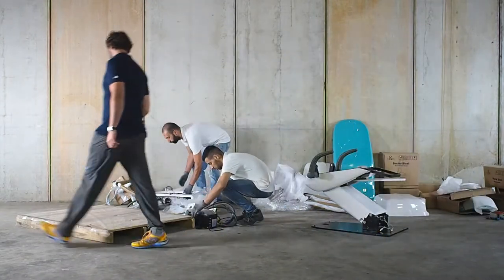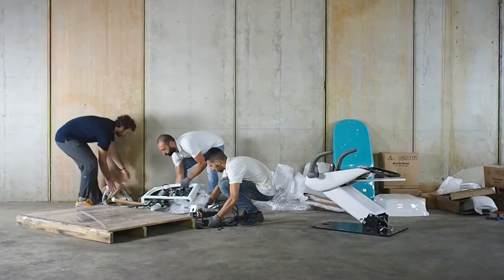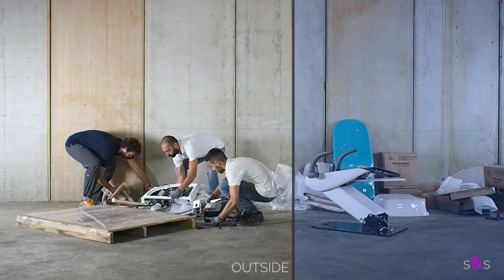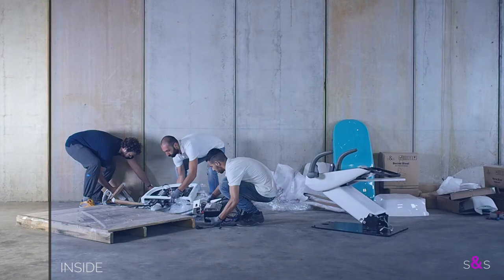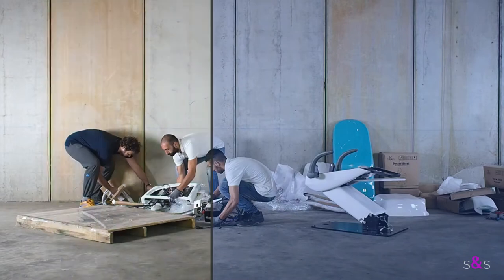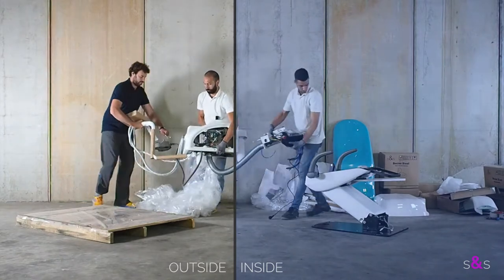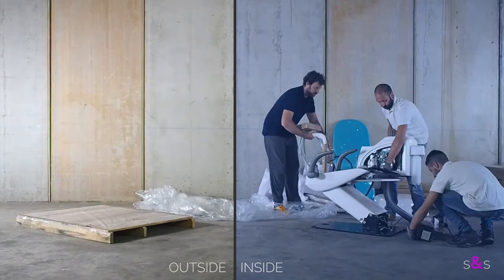It's time to place the water unit in position. The water unit can be outside the clinic or inside the clinic. It depends where you have more space to do this operation. Place it on its metal stand and fix it with the four big screws while someone is keeping it balanced.